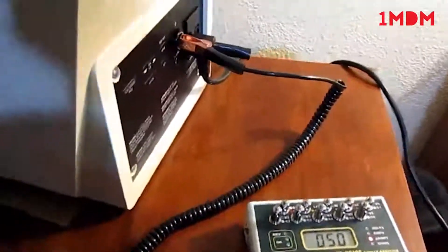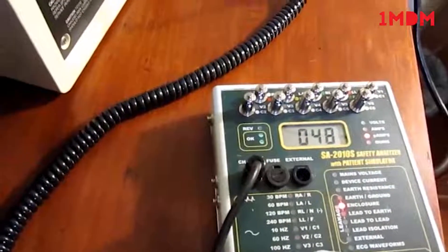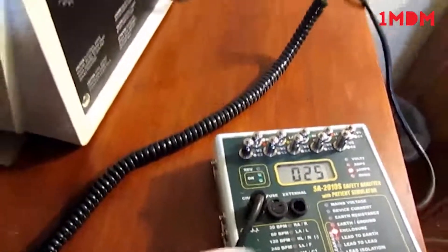And for the leakage current, we're getting 50 microamps, 48 to 50 microamps. That's pretty good.